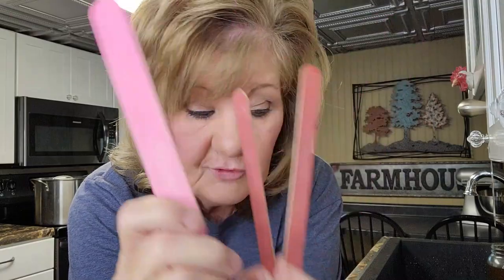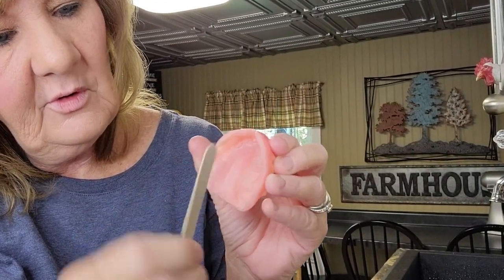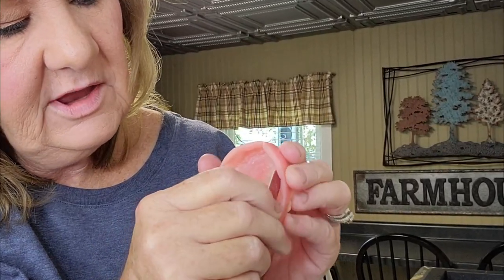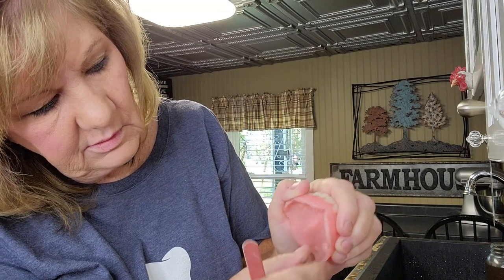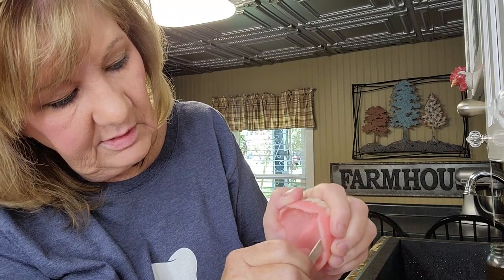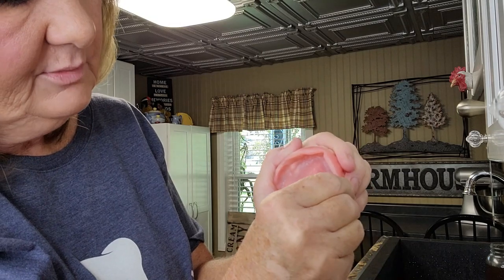If you're having denture pain and you know what spot it is, you can fix it yourself if you trust yourself. I've got two different kinds of nail files — smaller and larger — I use them for different things. Right now I want to get into right there. I'll file, and it doesn't take much, just a little. Remember, you can always take more off — you can't add more back. So we're just going to do just a little in there. I can feel it, kind of. After you do it you can feel that it's rough.